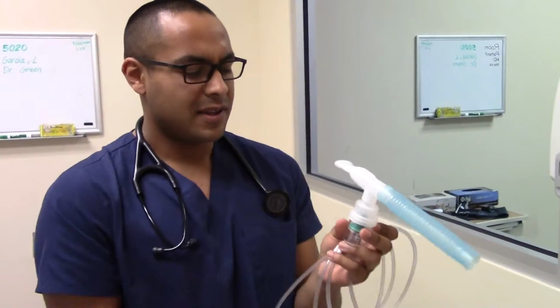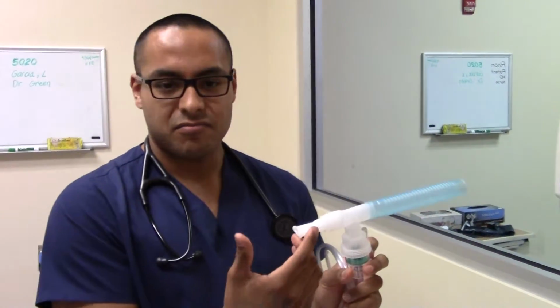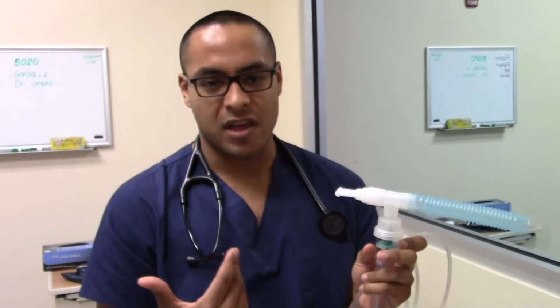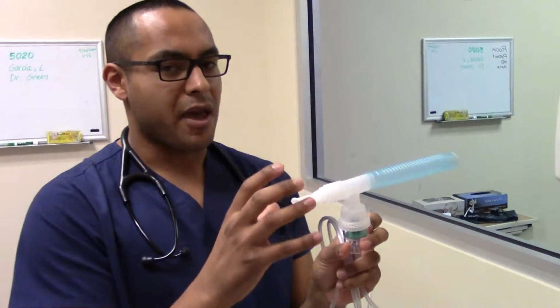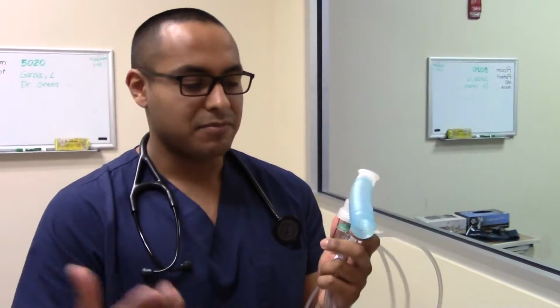This is the reservoir. If the patient is good, I check the charts. It helps the patient, just a little wheezing, okay. But if the patient's worse, you wouldn't want to use this. They might have a bad inspiratory rate, so you want to use a mask. It helps them just relax while giving medication. Better, yeah, so that's beneficial. This is the equipment I'll be using.